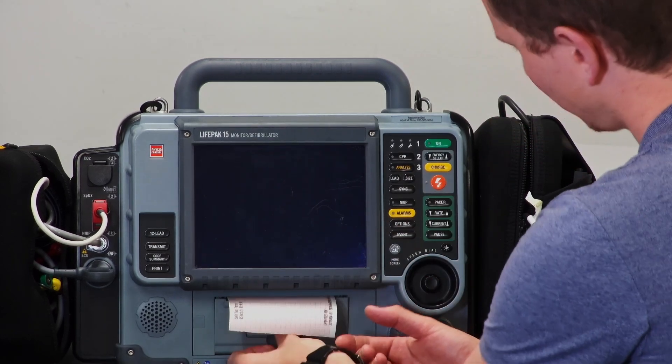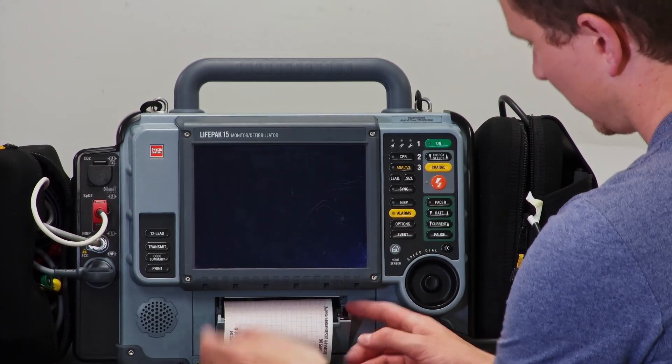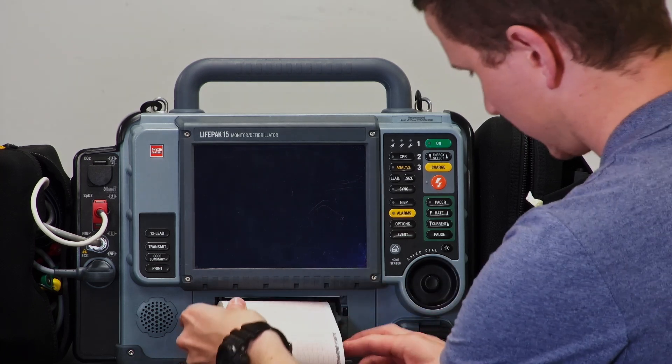At the front you see there is paper. There's a little lever here that you can pull, and if you pull out the paper, the roll just comes out. There's not much to it.